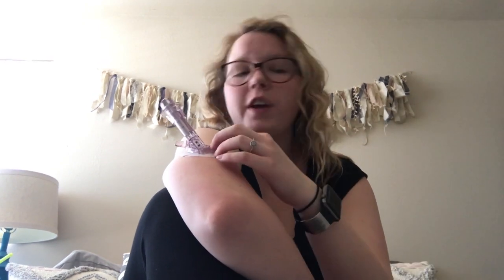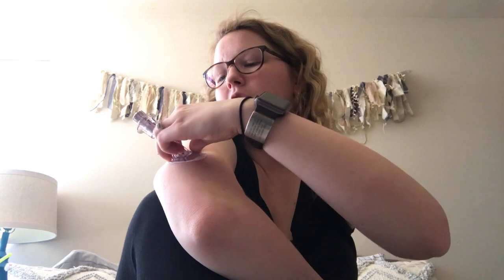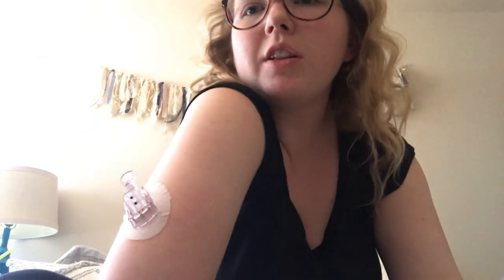I'm going to pull the needle back because the needle is in my arm right now. Now the tricky part is I have to get this giant inserter off of my arm by myself. Those same tabs that you saw me pull with two hands to get the sensor out I have to do with my non-dominant hand — which is why I normally like to put it in my left arm. With my non-dominant hand I'm going to try and pull both of these tabs — easier said than done. Got it!